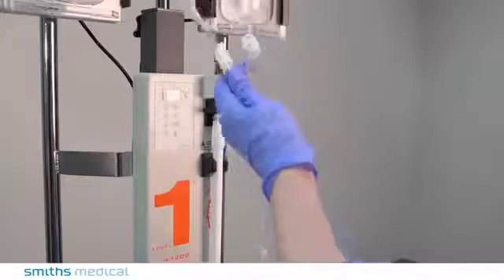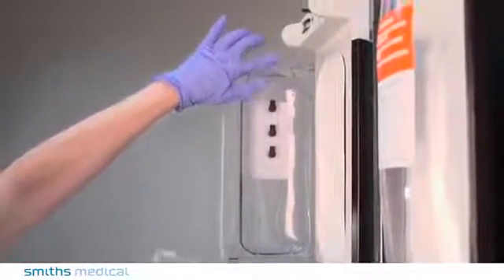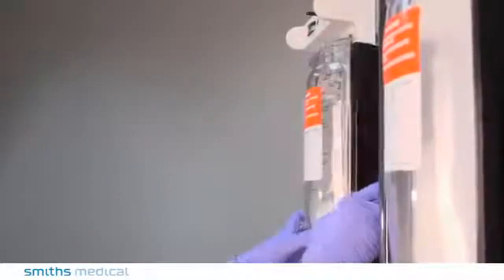Invert the fluid bags using aseptic technique. Hang the fluid bags in the pressure chamber on the appropriate hook. Close and secure the doors.